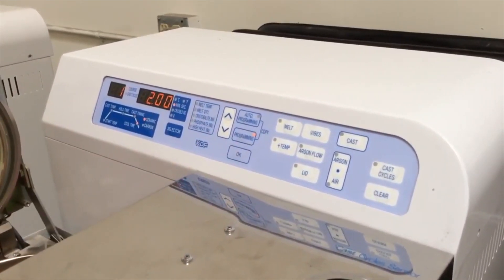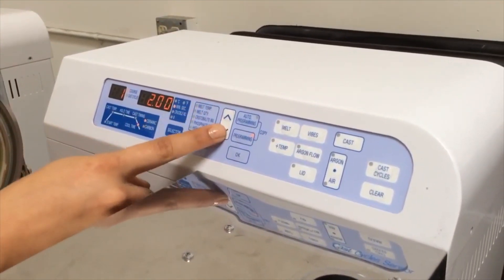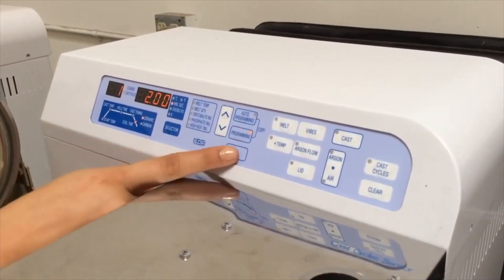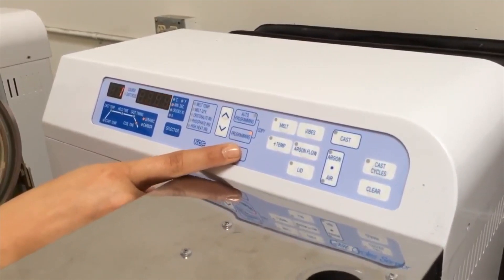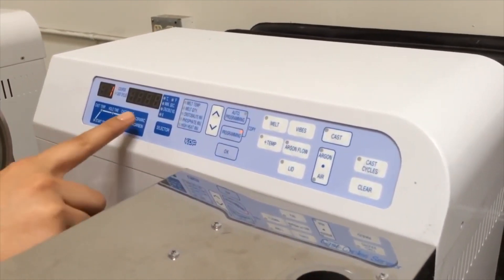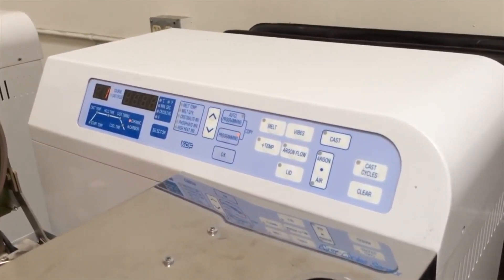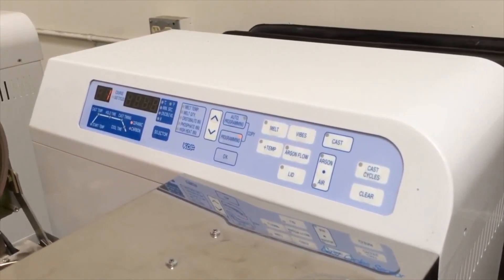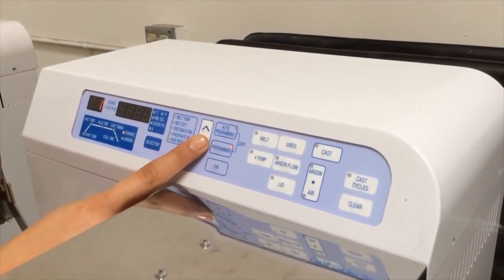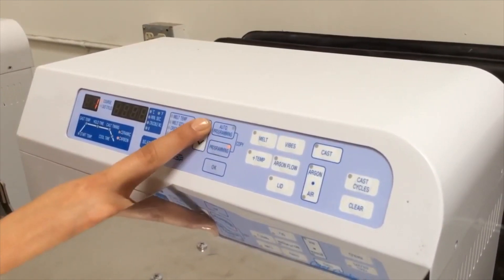Now enter your cool time. Once you have done that, press OK. Now you see that the ceramic light is blinking. Please choose the crucible you will be casting with, either ceramic or carbon.